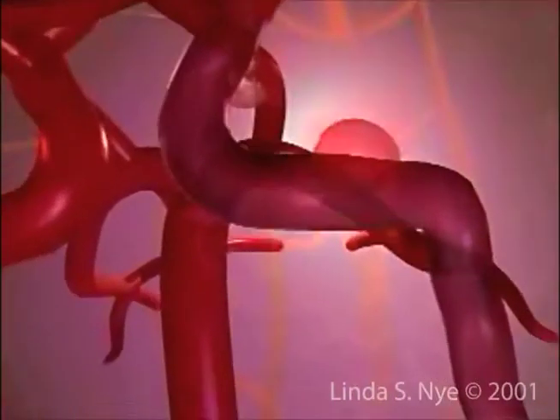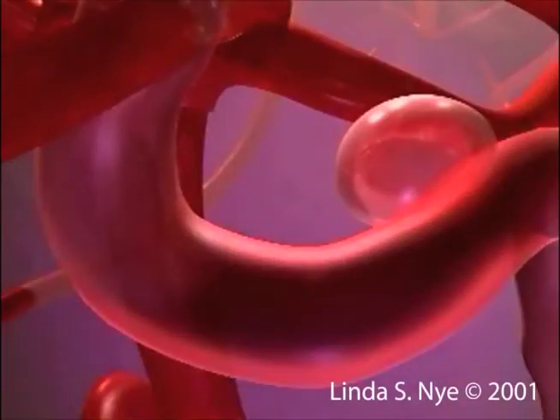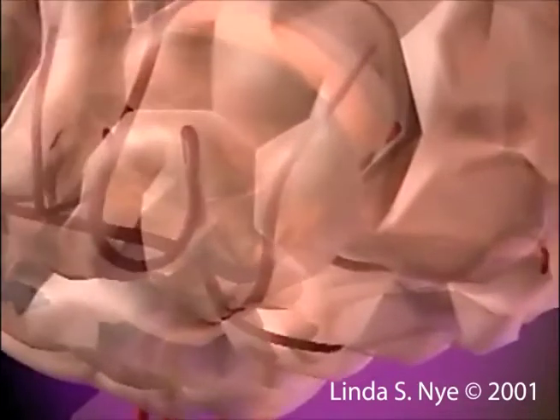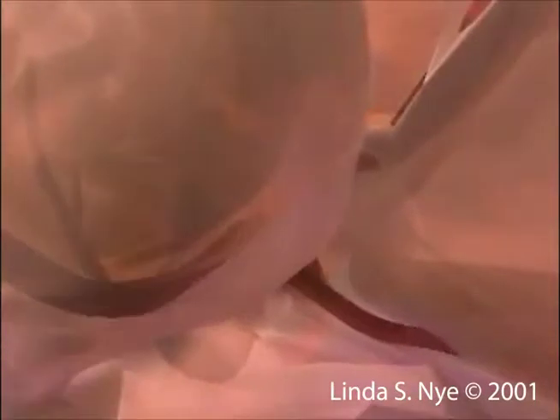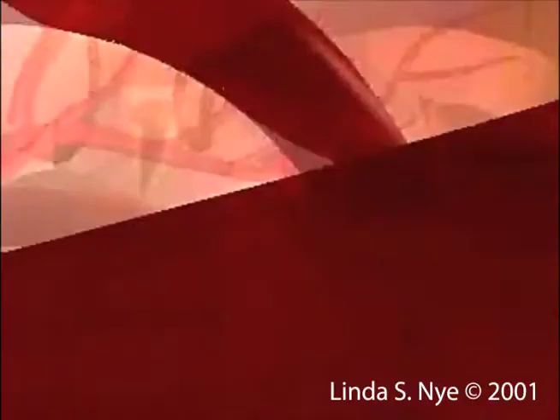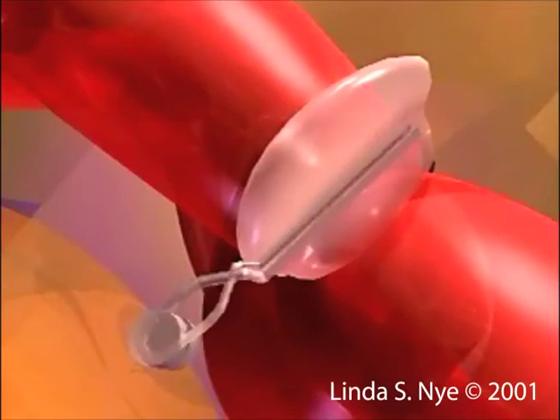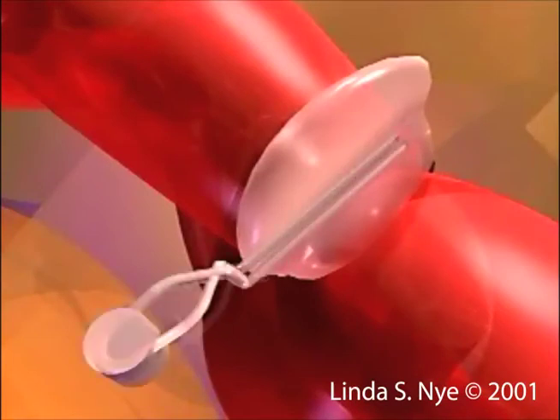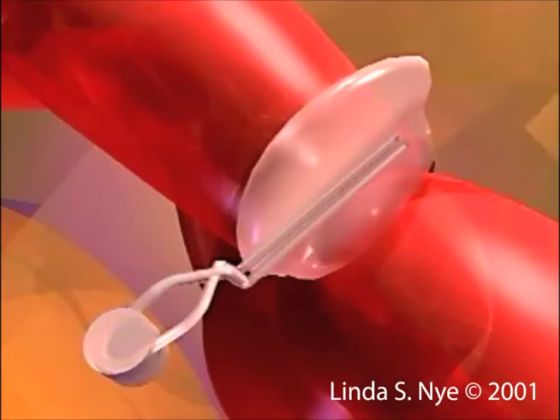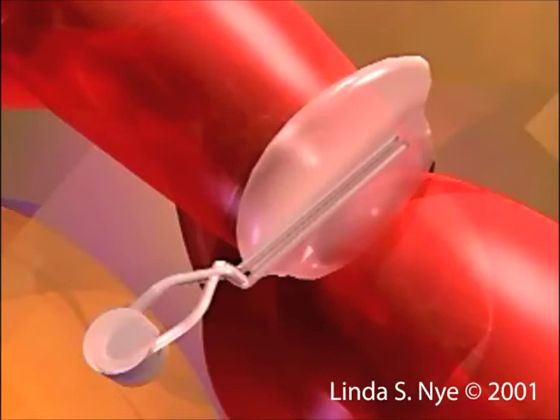An intracranial aneurysm — notice the abnormal widening or dilation of the blood vessel. Most aneurysms are treated through open surgical procedures by placing metal clips across the neck of the aneurysm. In addition to the risks associated with an open craniotomy, there is potential for the clip to migrate off the neck of the aneurysm, often creating regrowth of the aneurysm, which in turn may require retreatment.